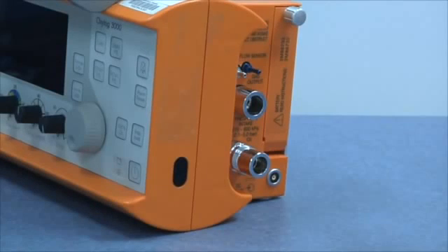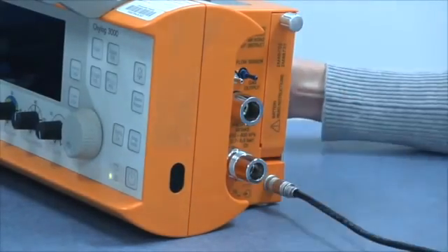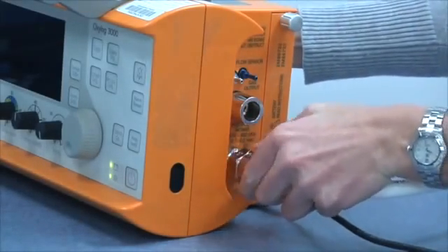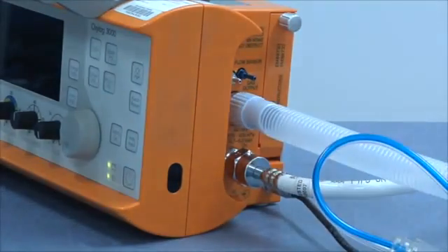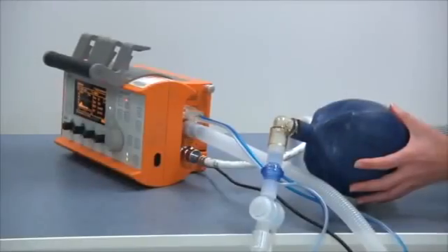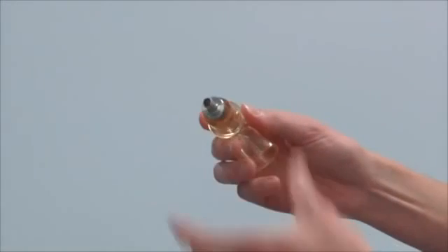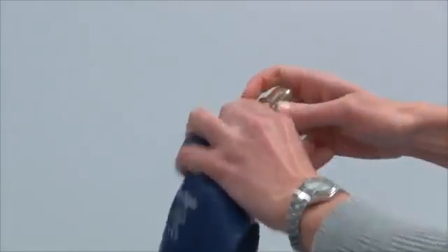Now that we know the difference between front and back, let's connect it up. Before turning on, connect the DC supply if it's available, and the oxygen, ventilator, and sensor hoses. The oxygen hose should only go on finger tight — you don't need a spanner. The sensor hoses are colour coded clear and blue to match the connections on the side of the ventilator. It's good practice to attach the ventilator to a test lung before connection to a patient. The test lung consists of a plastic elbow connector, a metal catheter connector, and a breathing bag. The test lung is needed for a complete device check which should be done every day.